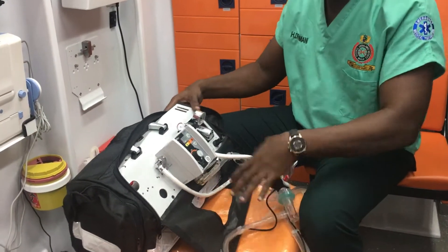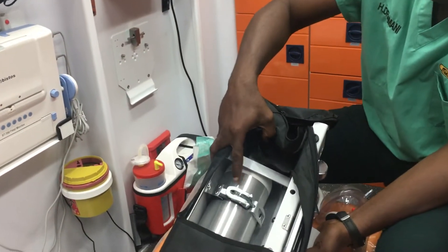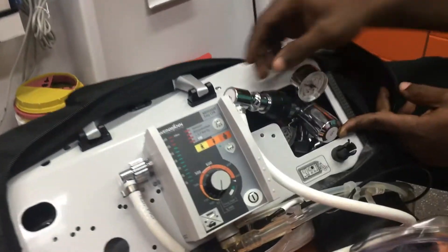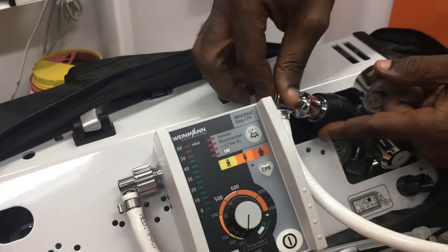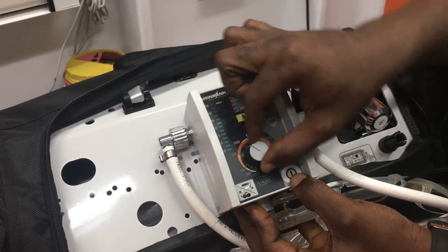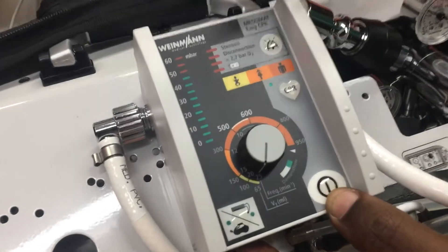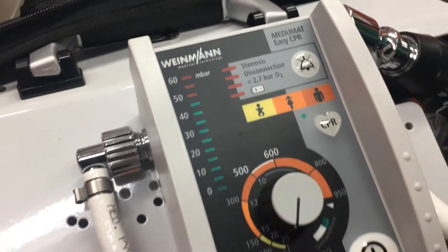Now let's look at the parts. It comes with a small oxygen cylinder and a cylinder regulator, and a port where you connect the oxygen. This is the power button, and this is the patient mode regulator.